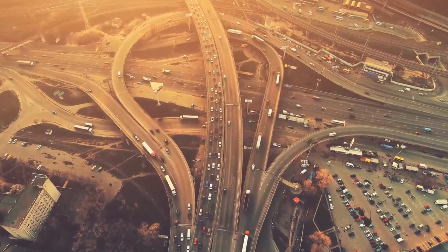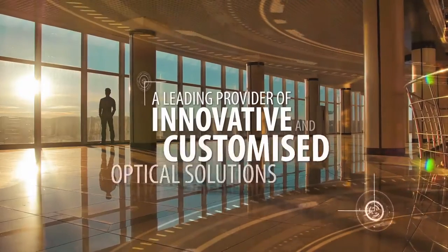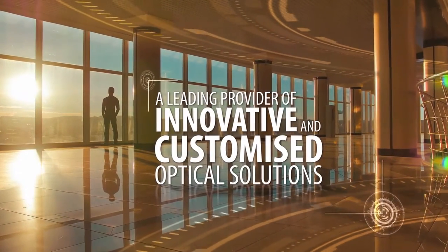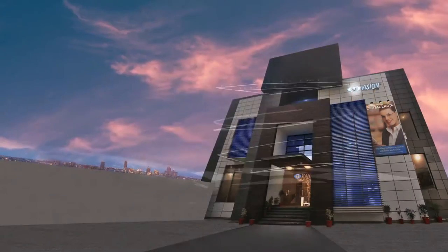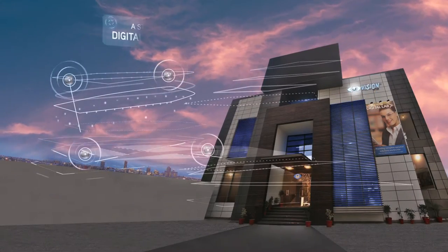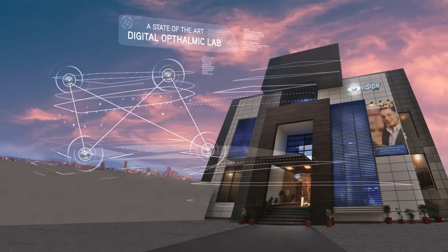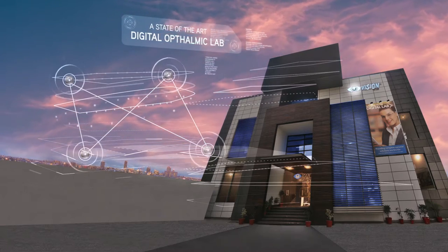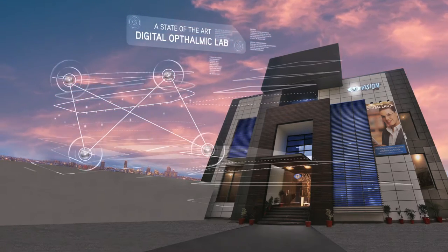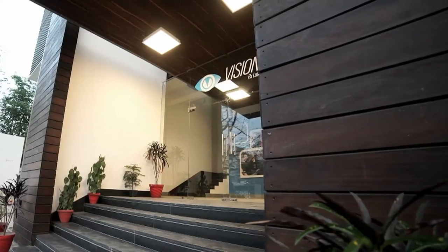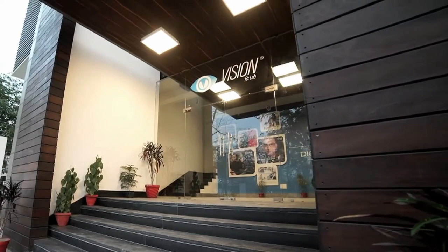We live in an age where customization and innovation form the hallmark of a successful business. Equipped with the latest lens manufacturing technologies and world-class infrastructure, Vision RX Lab Gurgaon brings innovative and customized optical solutions to all its customers worldwide.